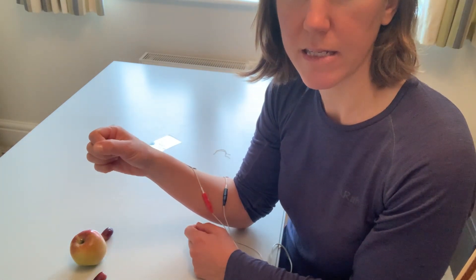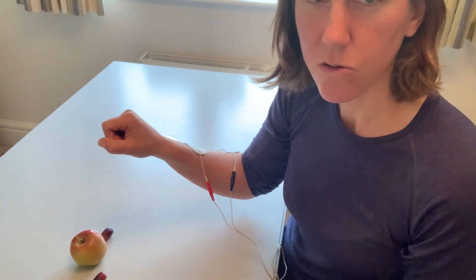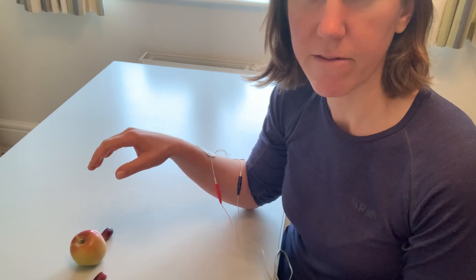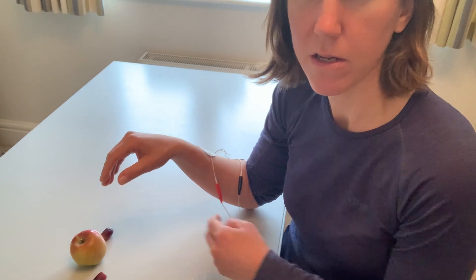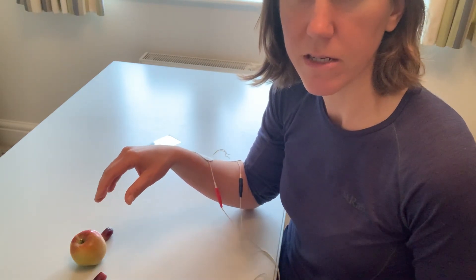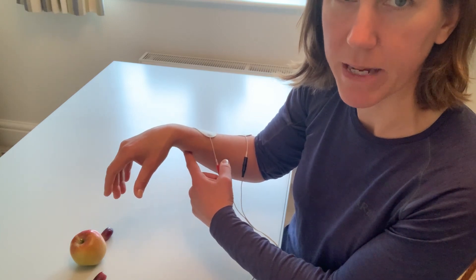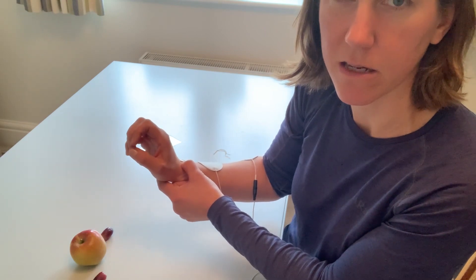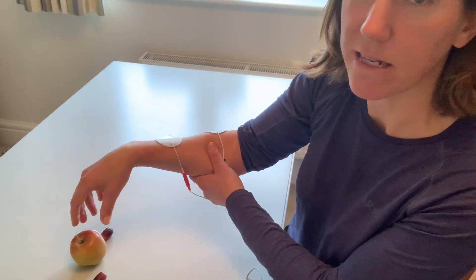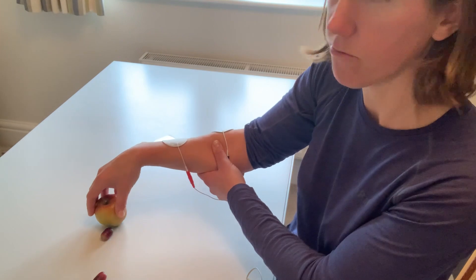If you struggle with a hand that's much tighter than mine and it struggles to open, don't be tempted to really turn the stimulation up to try and open the hand, because all you'll find is that you get a clawing position. Start off with a very gentle stimulation program for a few minutes to help open the hand out, and you can always bring your other hand in to assist — but not trying to force it at all. Until the hand is loose enough, it might need to start in more of a wrist drop position so the tension is off your muscles and you can get a better opening. A tighter hand may need to start more in a crane style position to get a very simple, gentle opening to get around the object, and initially you may just be craning left and right to let go.